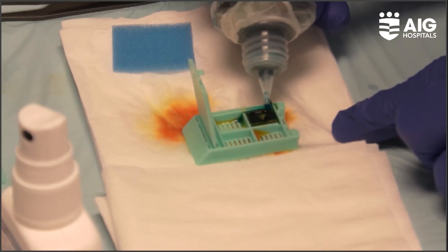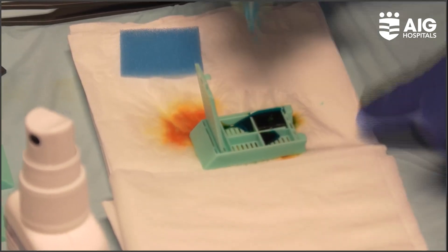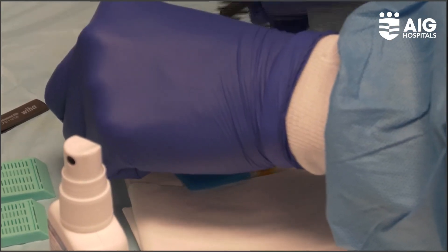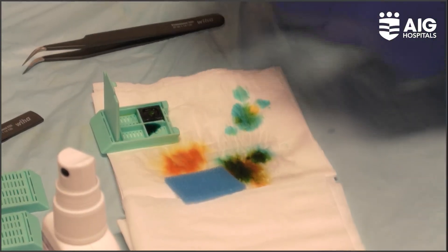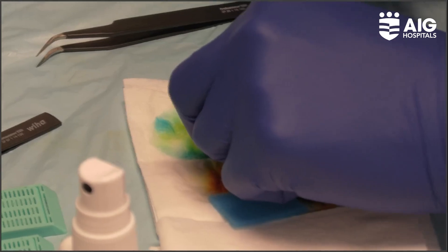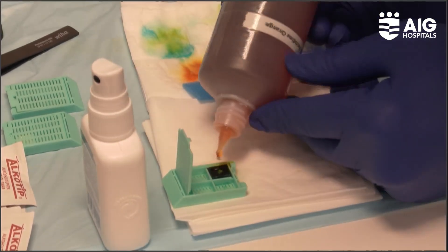I'm staining with fast green — this is representative of eosin for us — and a little bit of staining the extracellular matrix. The main advantage is we are not going to make any squash smears, we are not going to damage the tissue, and we are going to get sections just like protocol-based biopsies. We are not going to damage the tissue, and we'll put it directly after this small staining onto the confocal microscope.